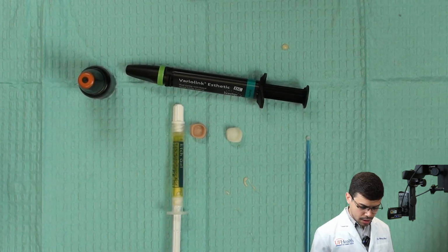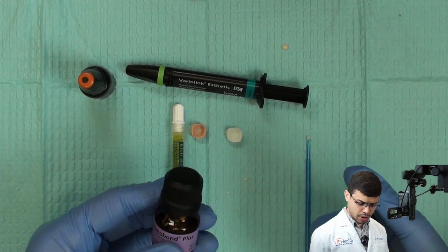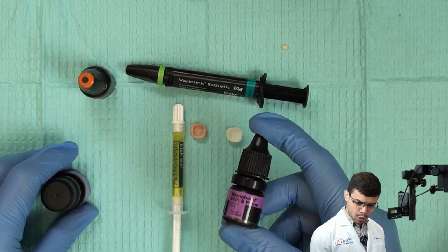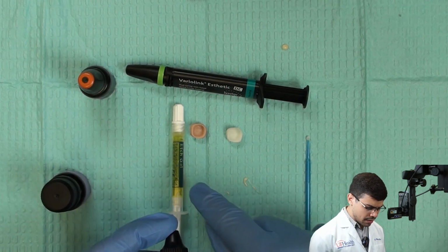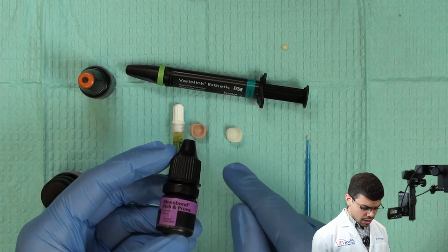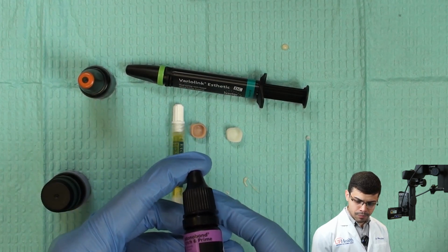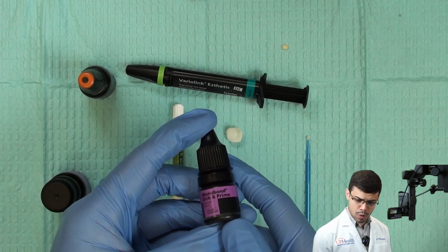Very nice. Now, I also have to decide which primer I'm gonna use, okay? We have this one, Monobond Etch and Prime, that is made for glass ceramics. This one is one of the tricks that I put here for you. This etch and prime is basically a combination of an acid that is not hydrofluoric acid and silane that you can use at the same time. You can etch and prime a glass-based ceramic. So think about this as a one-step etch and prime of ceramics.